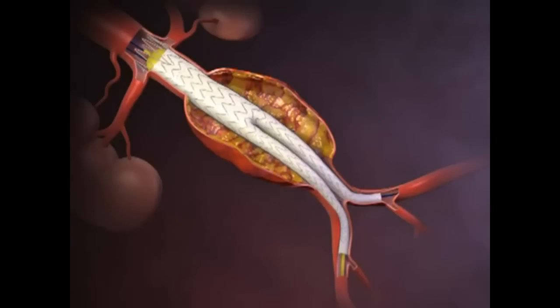Finally, the sheaths and guide wires are removed and the femoral arteries repaired. Aortic blood subsequently flows through the stent graft.